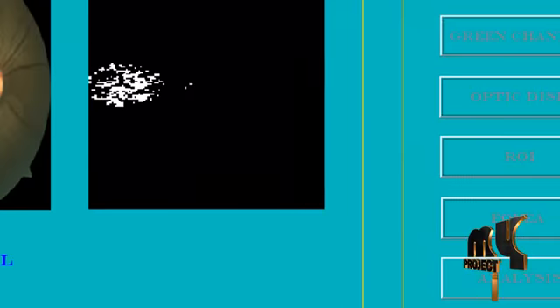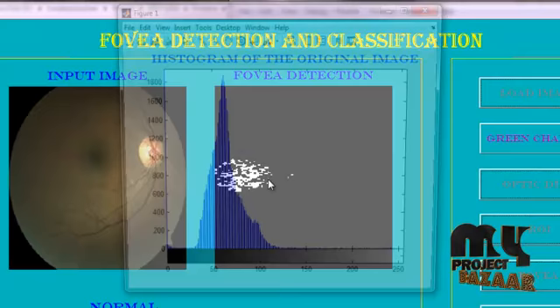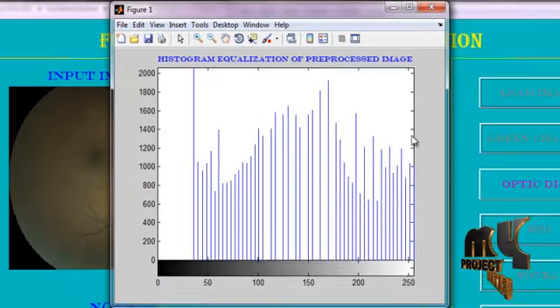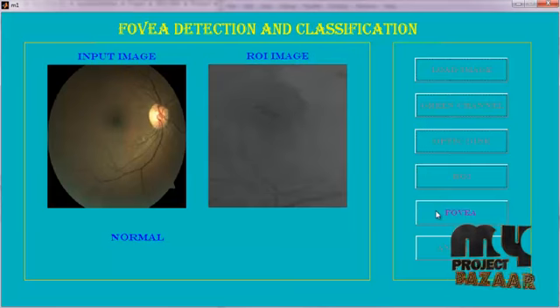Now we go to load another image from data set. Then the same process will be again. And we will find the green channel value. And then optic disc. And go to the region of interest.